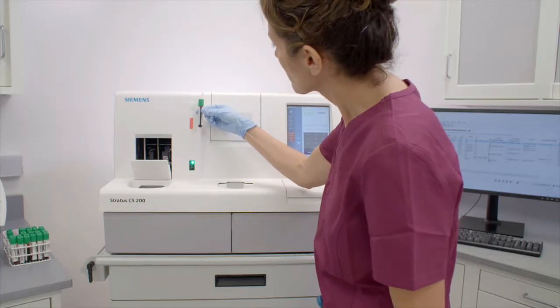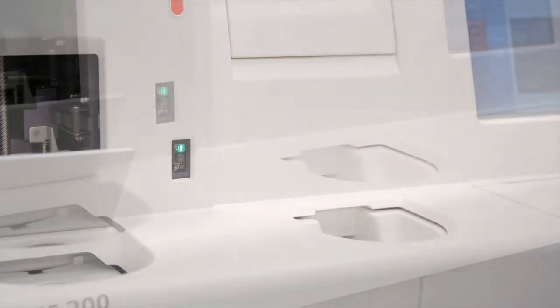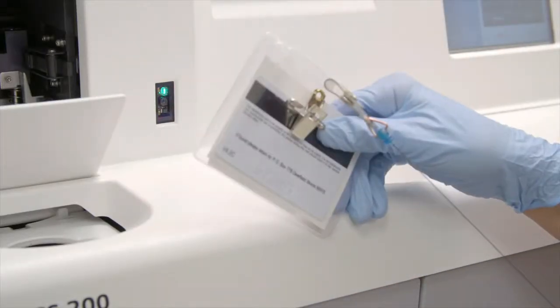It's easy to enter required information about the sample. Just scan the patient barcode on the collection tube, and then scan or manually enter the operator ID.